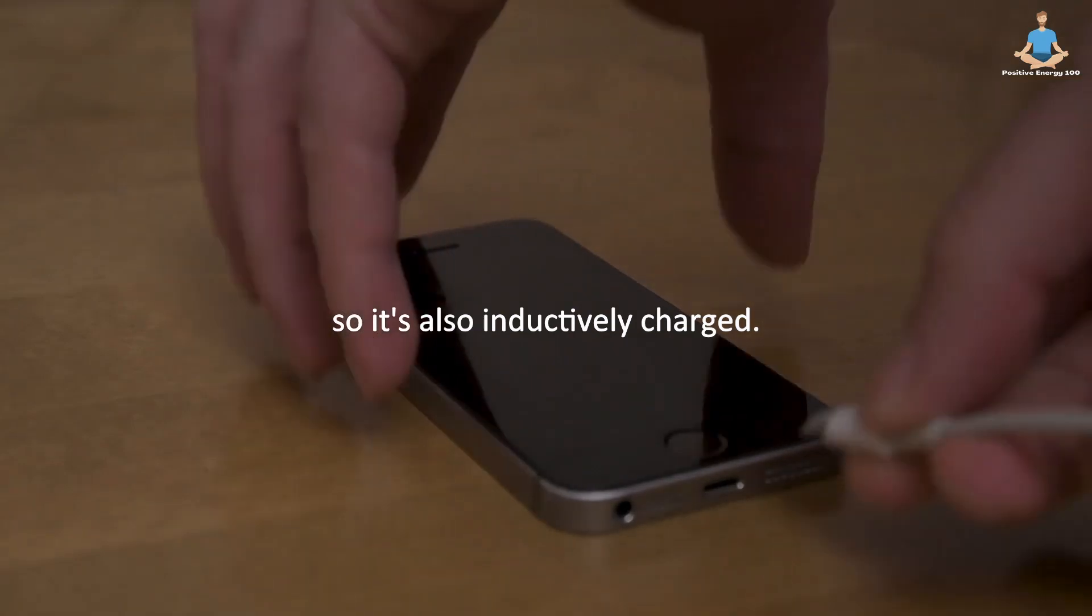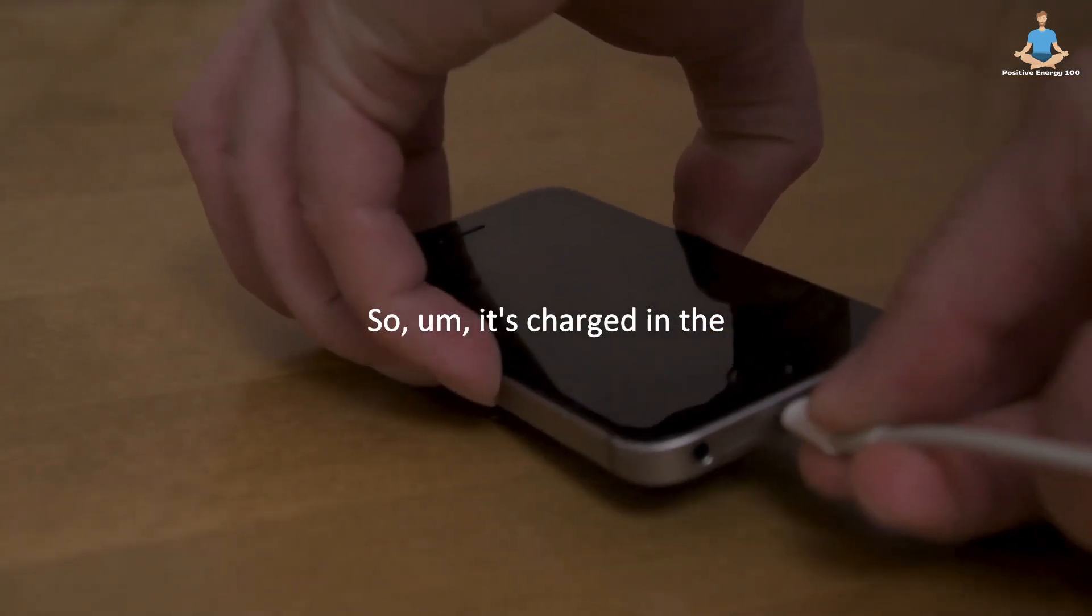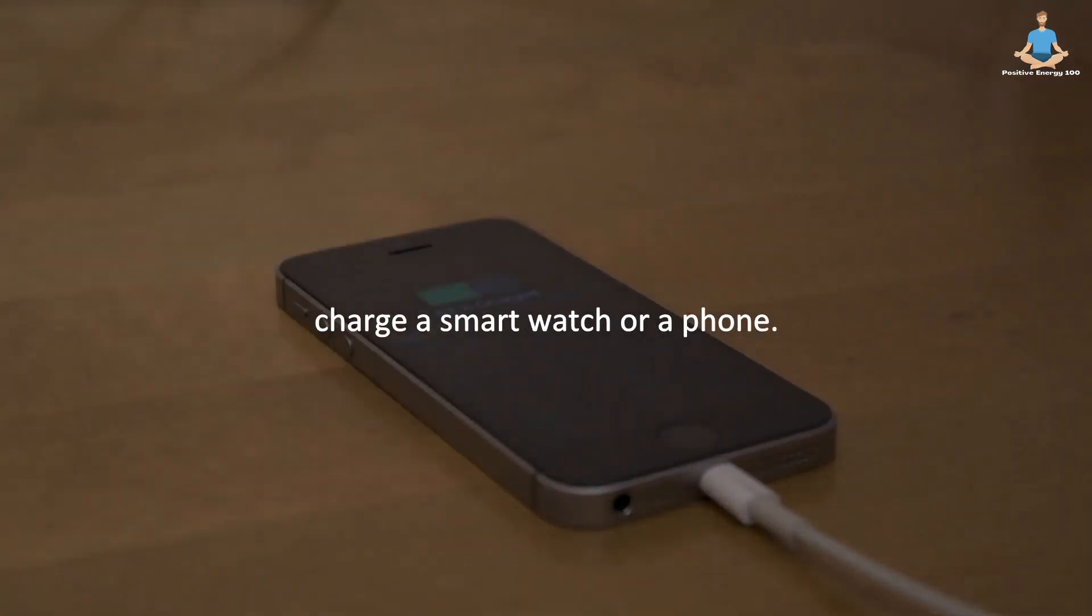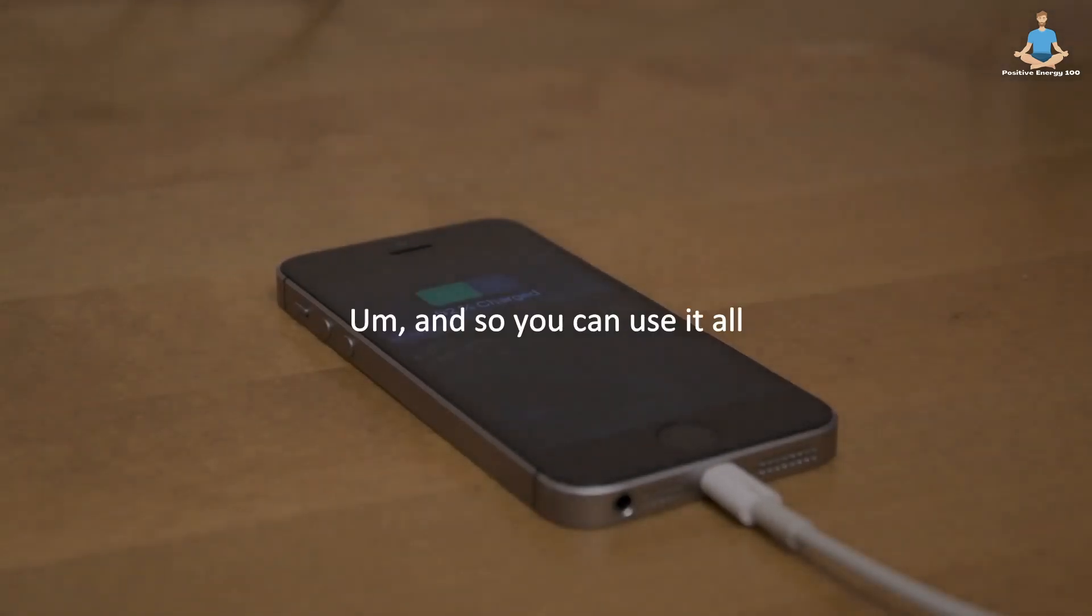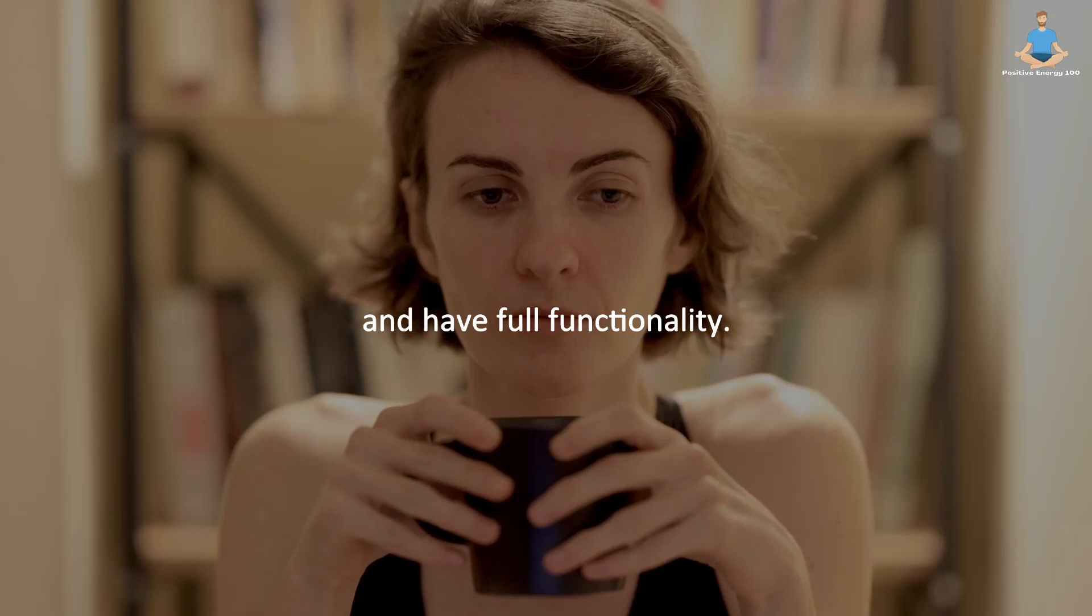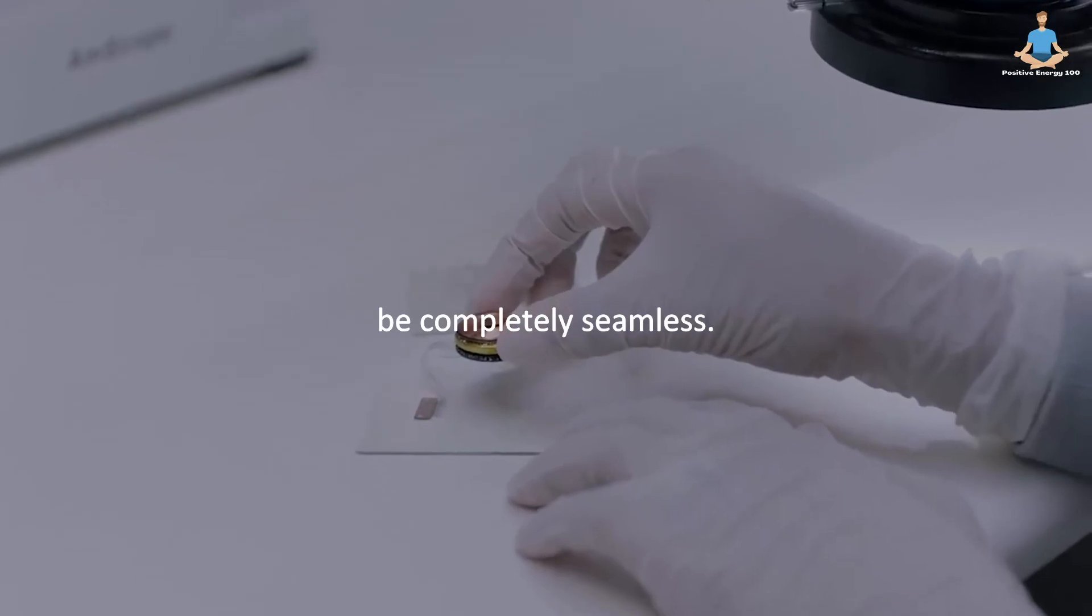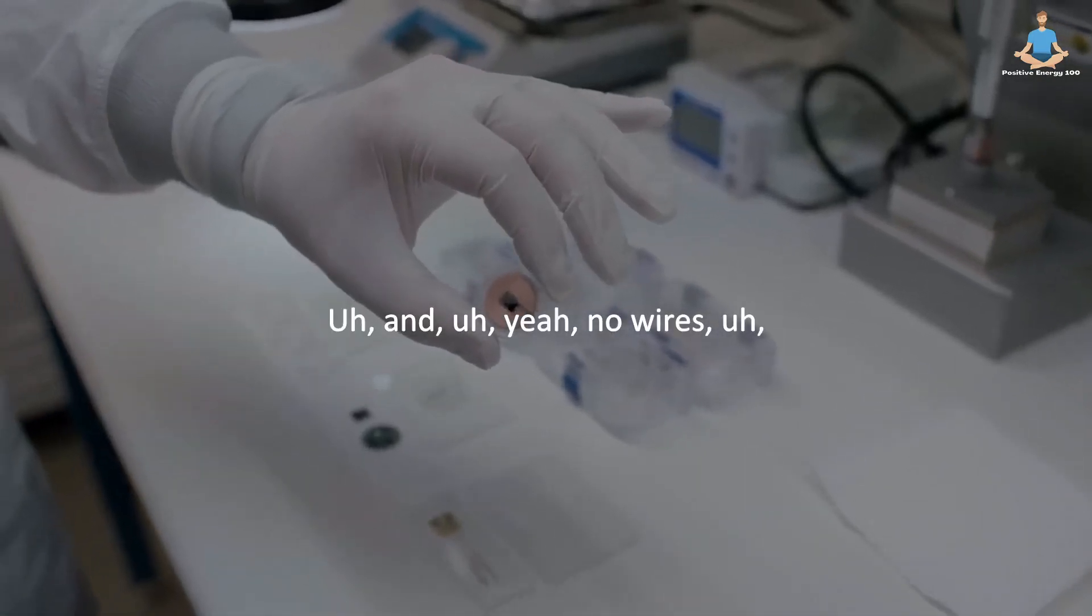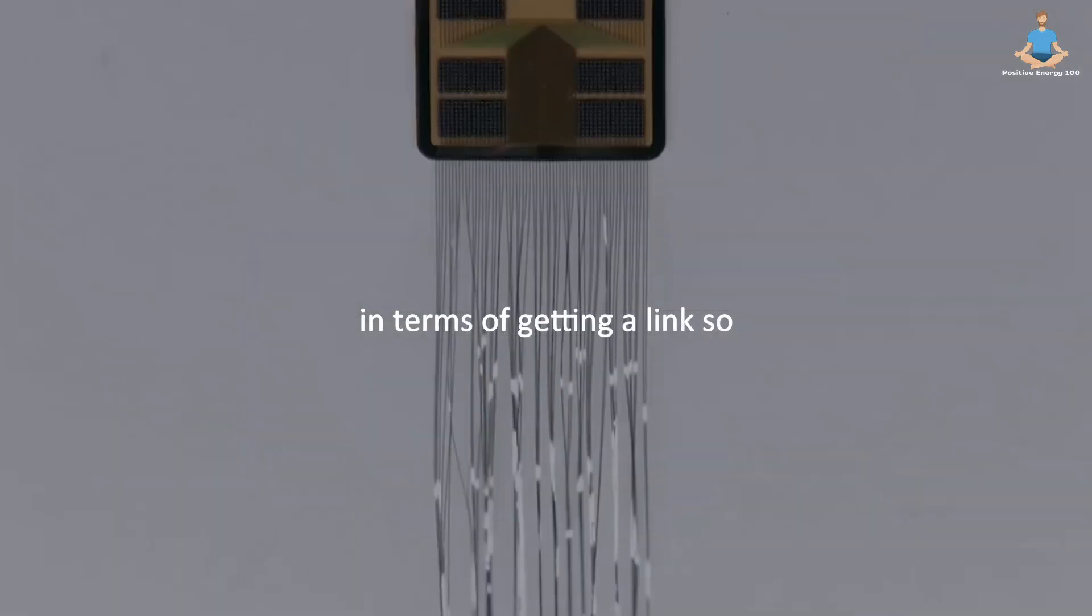So it's also inductively charged. It's charged in the same way that you charge a smartwatch or a phone. And so you can use it all day, charge it at night and have full functionality. So it would be completely seamless, and no wires in terms of getting a link.